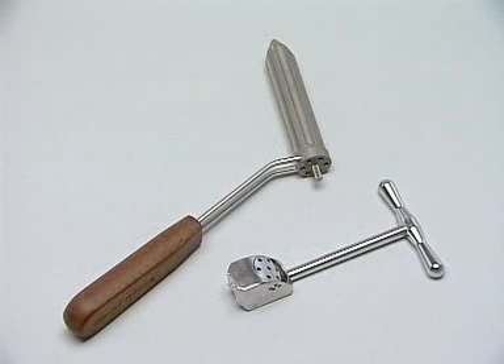There are two additional guides available. The one on the left is for the minimally invasive or percutaneous approach, while the other guide allows the angle of introduction to be altered.